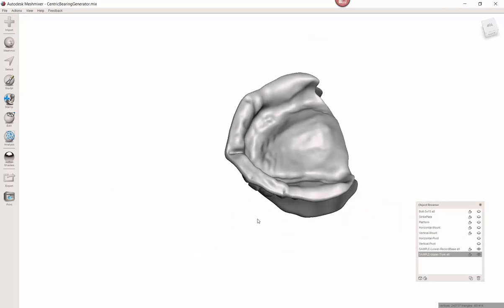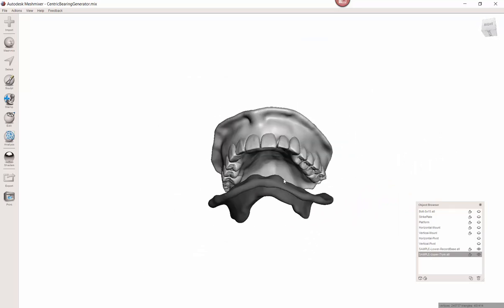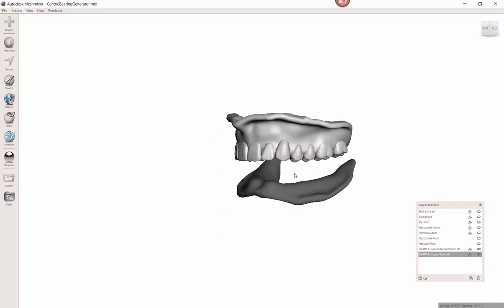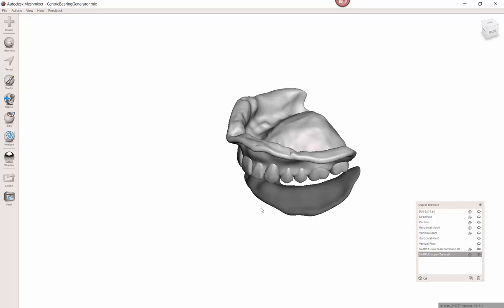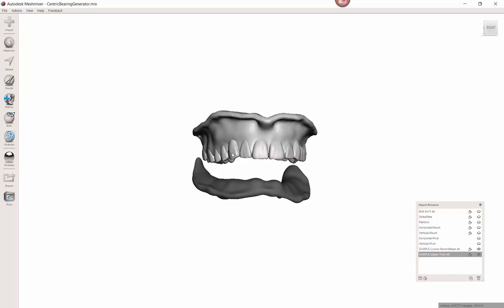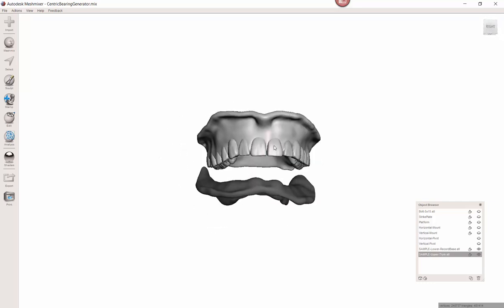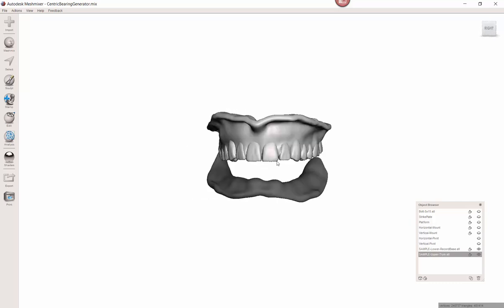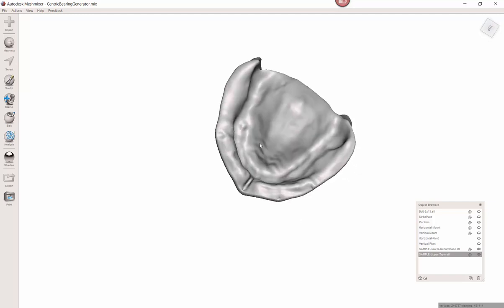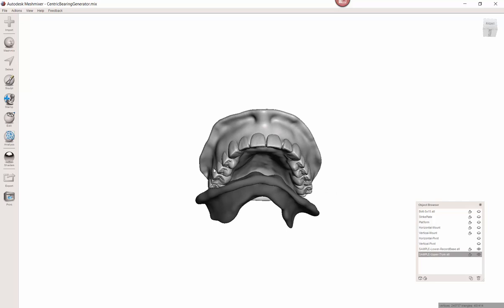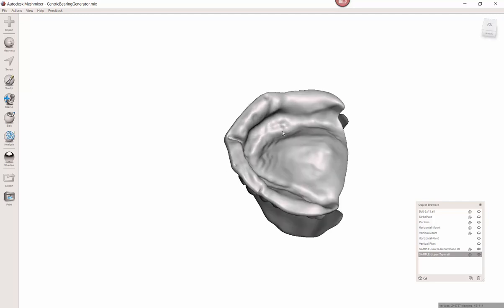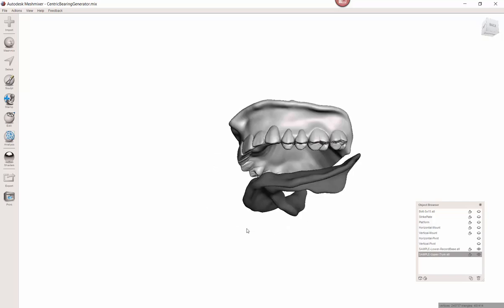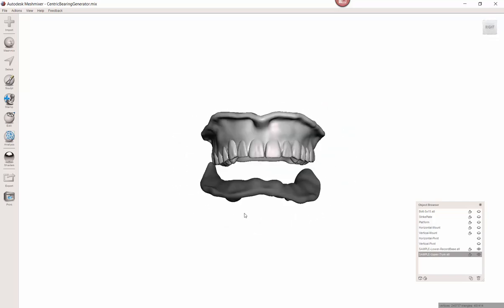Let's talk about what these are. Dr. Corey Glenn created these to give an example of how to use this device. Basically the first version that I had generated. What he did is he used Blue Sky Plan to create an upper denture with a setup of teeth based on anatomic landmarks and just an average. The idea being you could print this. It's probably gonna be pretty close to spot-on for the upper. Anything you need to change you can mark the midline. You can grind teeth to change the bite. But it gives you a starting point because we're gonna end up using this inside as our custom tray, border mold whatnot.